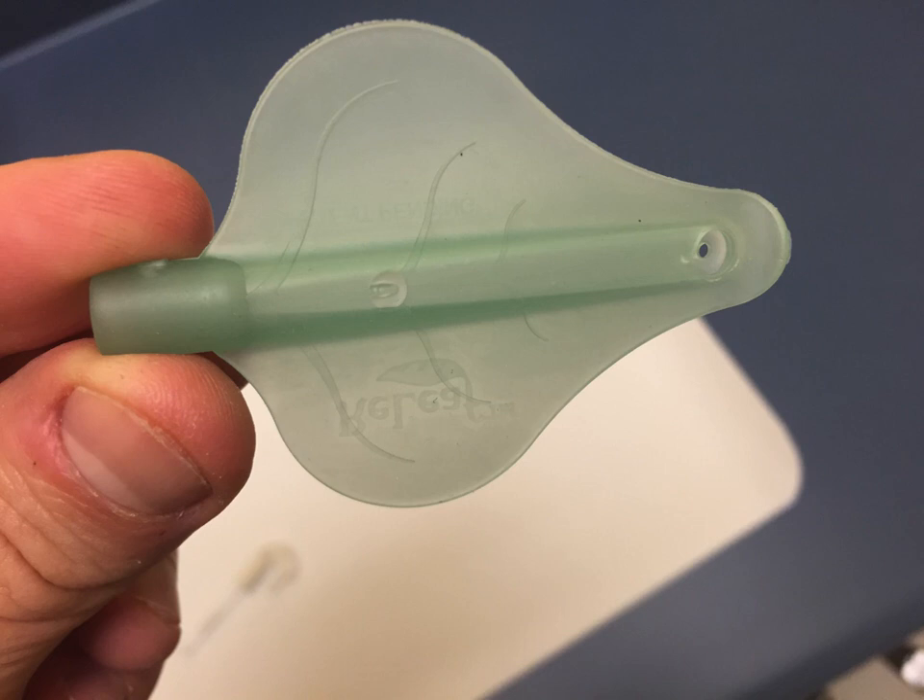On the back of the leaf, at the bottom, there's a little suction hole. On the front face — the side facing you as it sits in the patient's mouth — the suction hole is a little bit bigger. Further up the middle of the leaf there's a second suction hole you can punch through. According to the company, if a patient has a large tongue or too much tissue getting sucked in and blocking the main hole, you can punch that hole to get more suction.